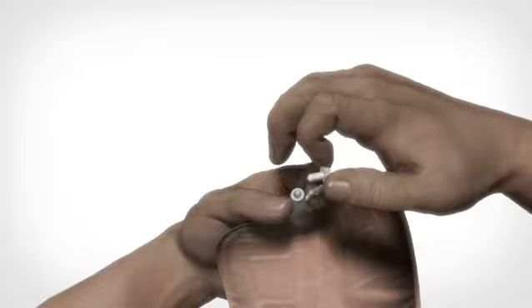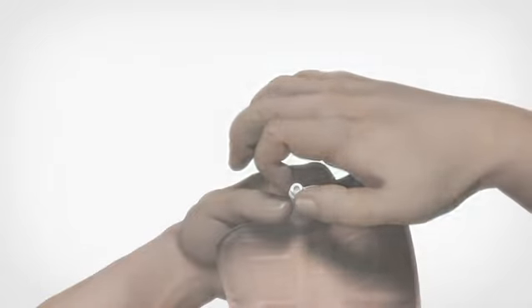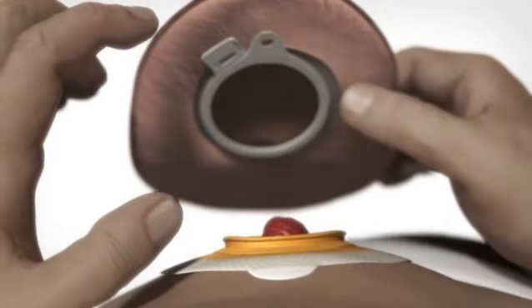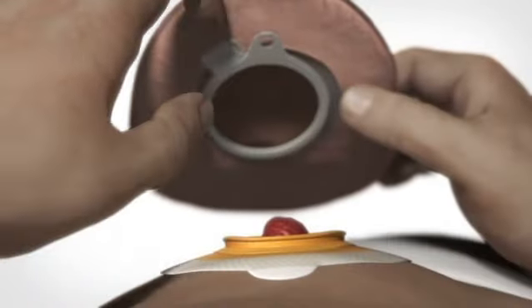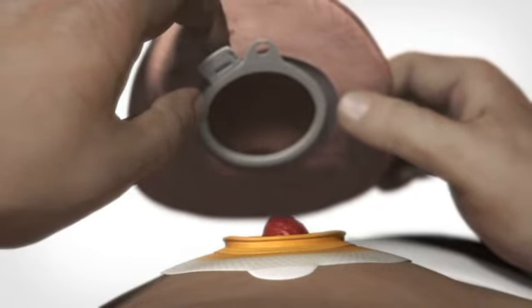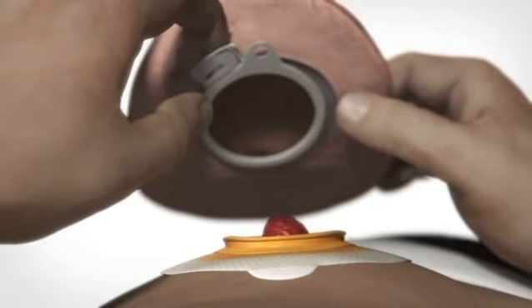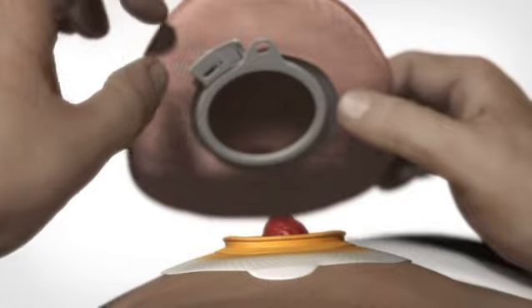Remember to close the outlet of the bag before applying it. Before attaching the bag to the base plate, you must ensure that the lock is open by pressing the small tab with your fingertip.